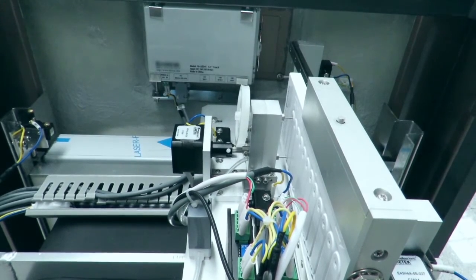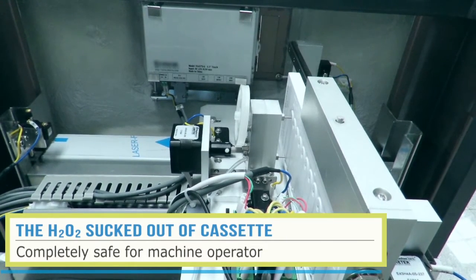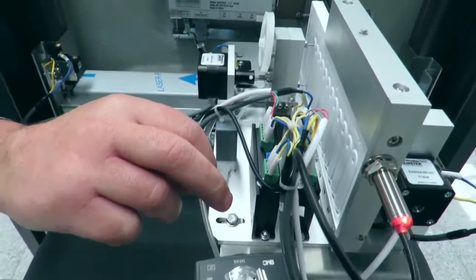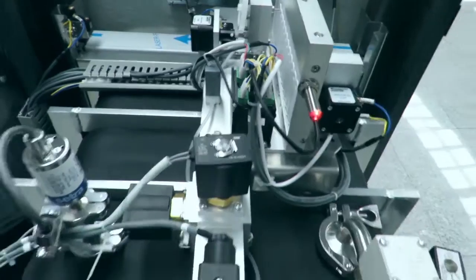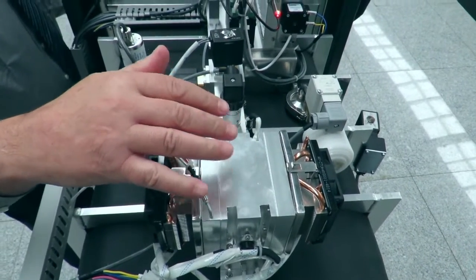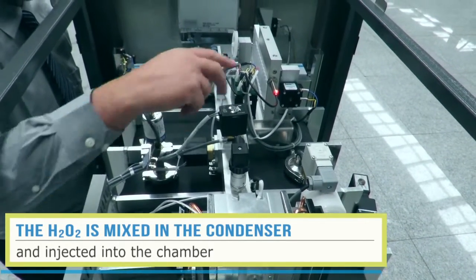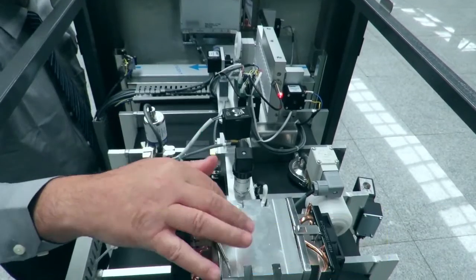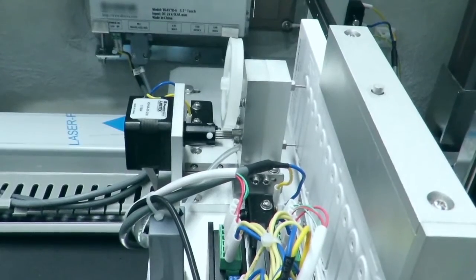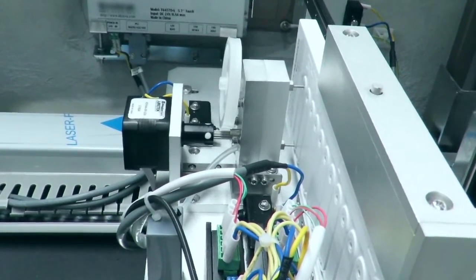Now it's penetrating the cartridge and now it's going to suck out the hydrogen peroxide into the machine, and through this small pipe over here it's going to suck it into this condenser over here. Then it's going to mix it and make the concentration from a 60% concentration of hydrogen peroxide into a 90% concentration, and then it's going to inject it and mix it into the machine for the process of sterilization.